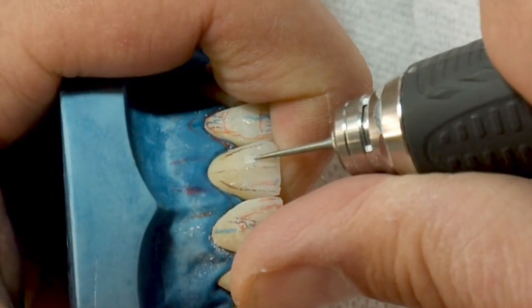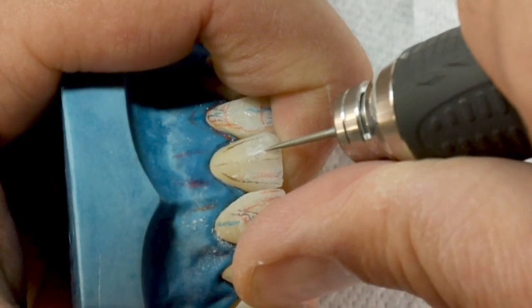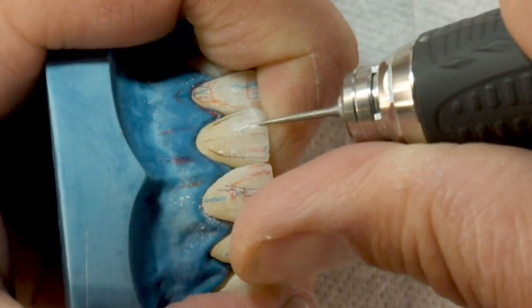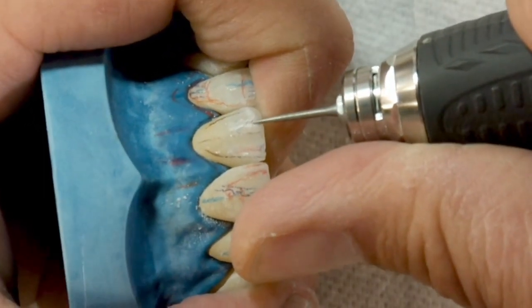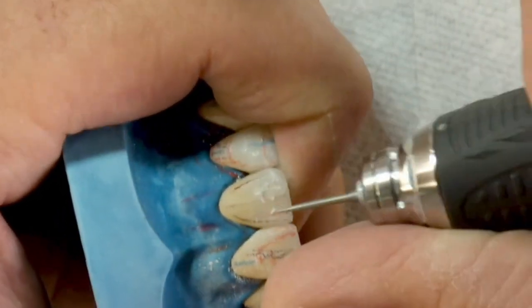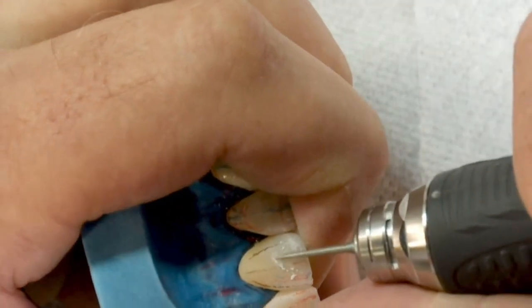What is the relationship between vertical depressions and tooth shapes? We can classify anterior teeth as having three typical dental shapes: oval, tapered, and square. If we have to create the surfaces of these teeth, we need to adapt depressions to the basic shape. Oval teeth are more convex and have a rounder outer shape, curved transition angles, and few lobes.